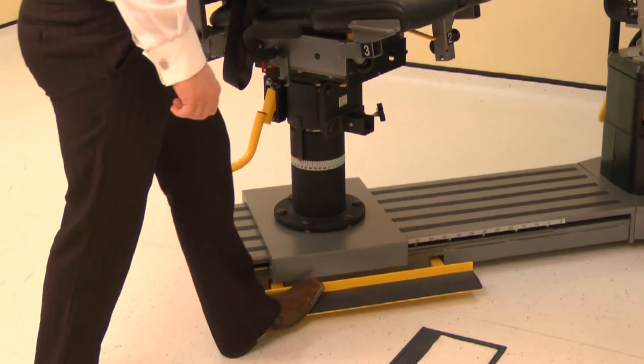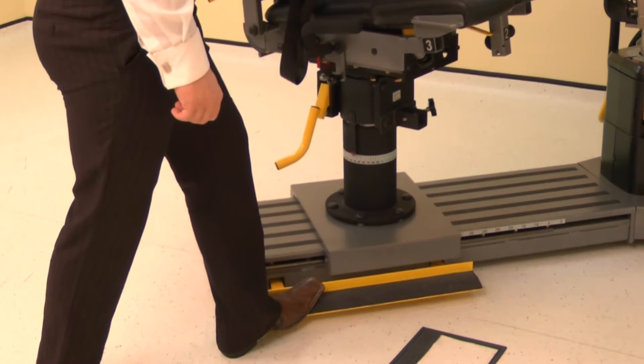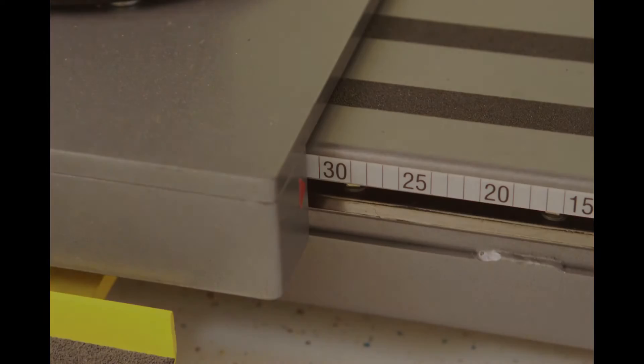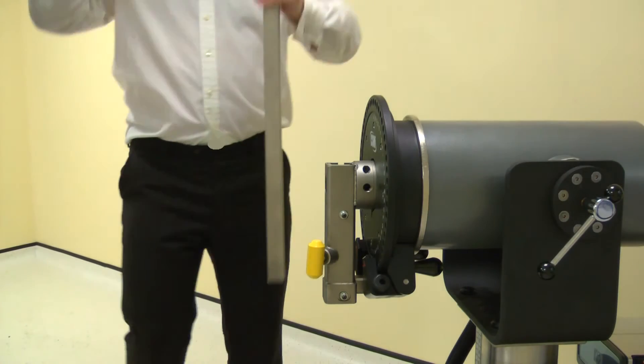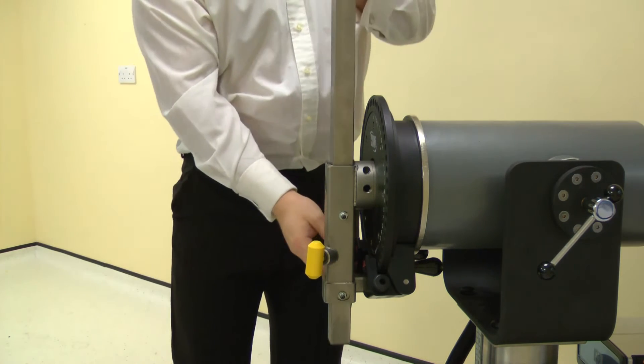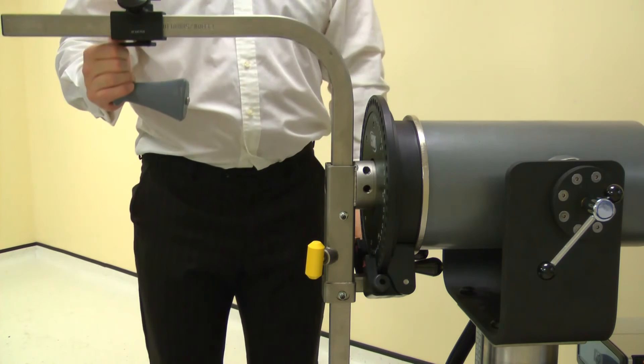Finally, position the monorail by pressing the kickboard and sliding the chair to position 32. Install the elbow-shoulder adapter into the long end of the input arm. Pull the locking pin to allow full installation, then secure with the locking screw.